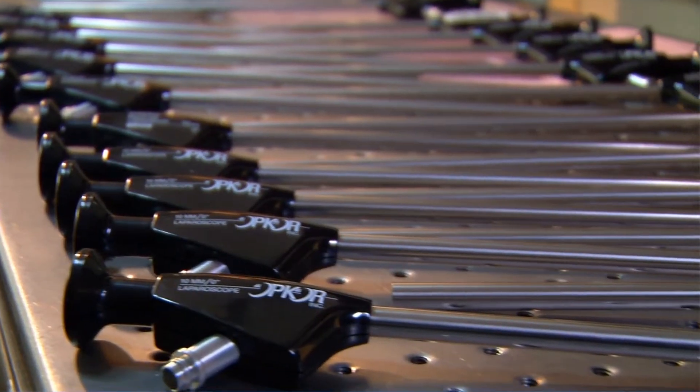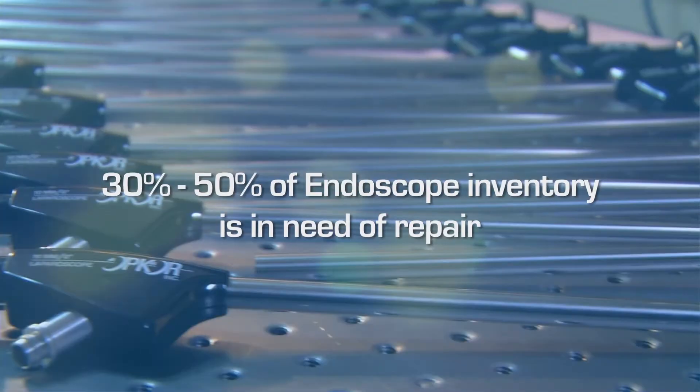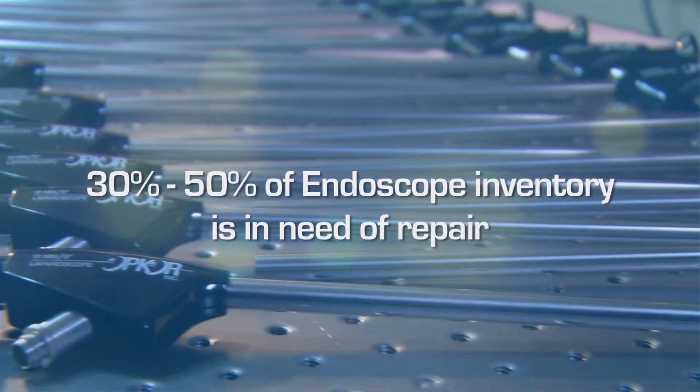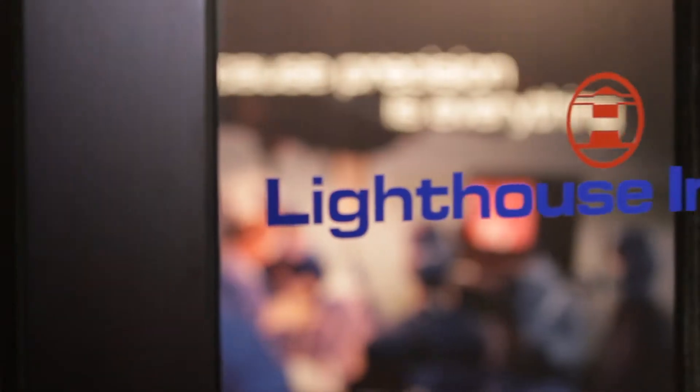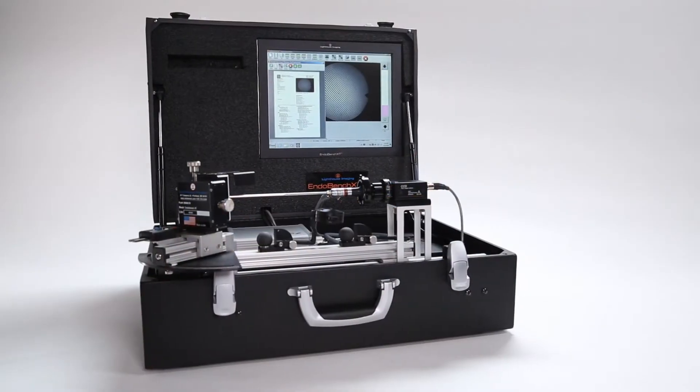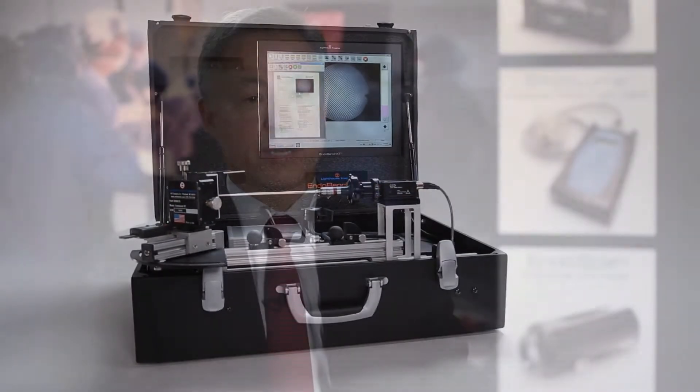In addition, it's common for hospitals to have 30 to 50% of their endoscope inventory in need of repair. Lighthouse Imaging with the EndoBench wants to standardize communication between OEMs and third-party repair companies, as well as the hospital, so everyone is talking the same language.